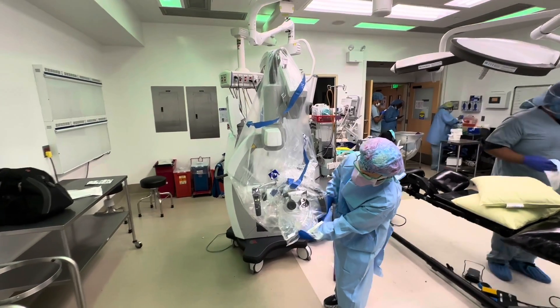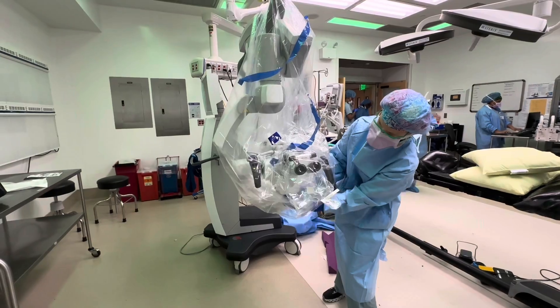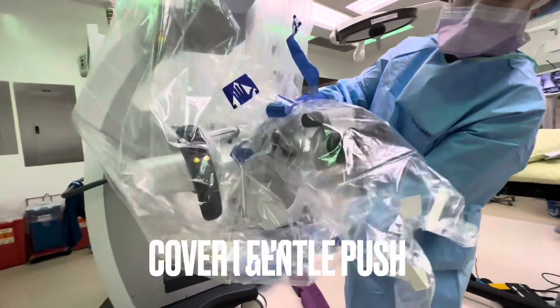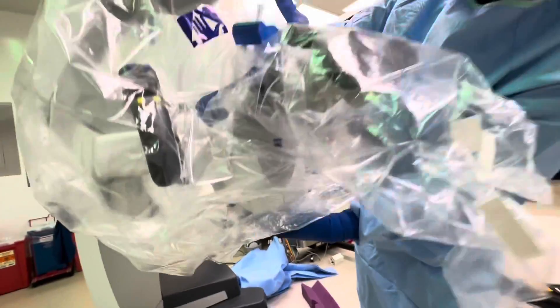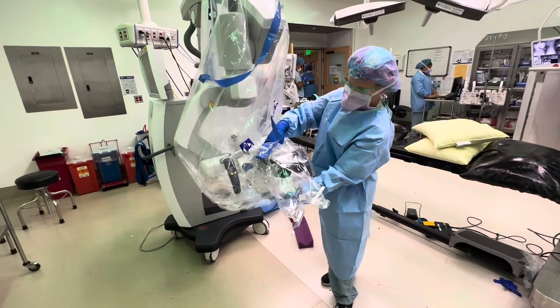Make sure there's no plastic in the eye openings. Then you take that piece and put it on where the light comes out and push. At the same time, hold the microscope so you don't bend it — just hold the top.